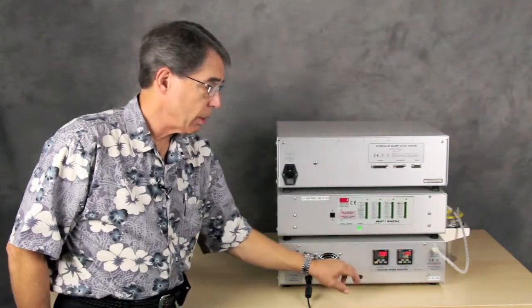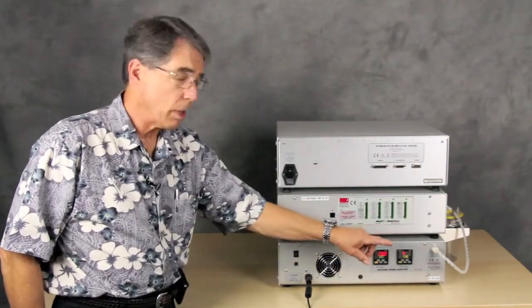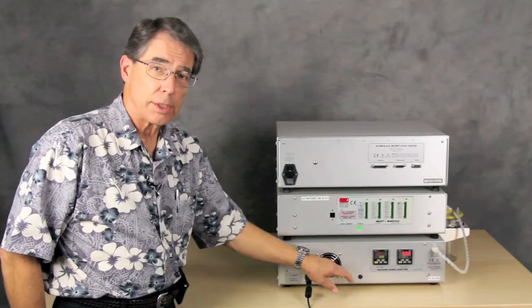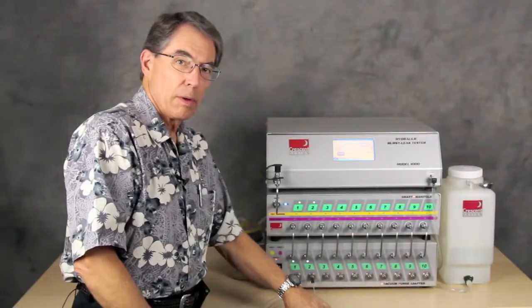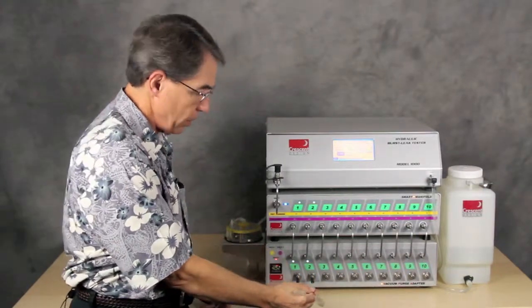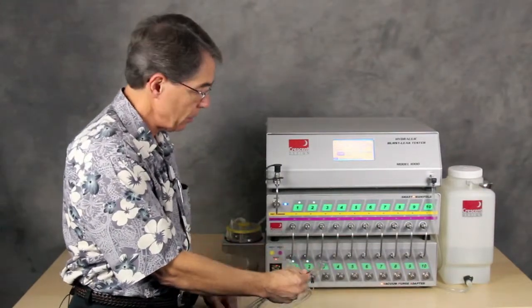Over here, you see the connector for the vacuum reservoir that is attached to the side of the VPA. Okay, here we are with a couple of catheters hooked up to the VPA.